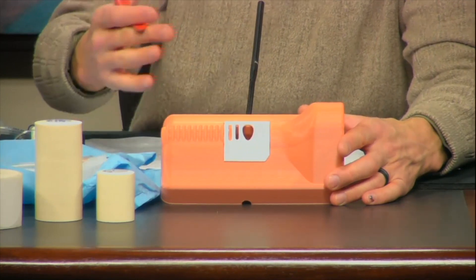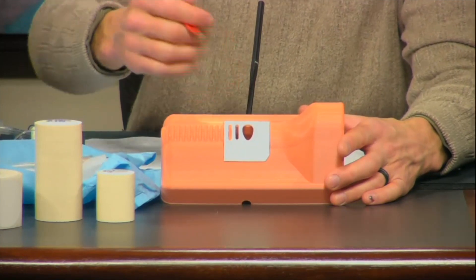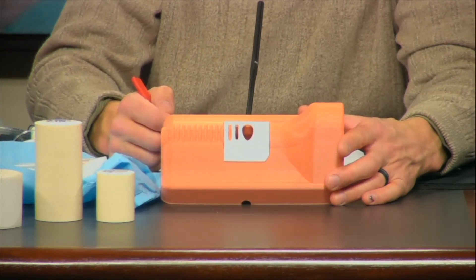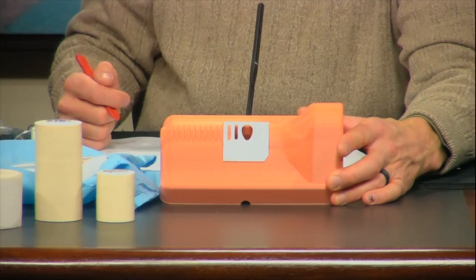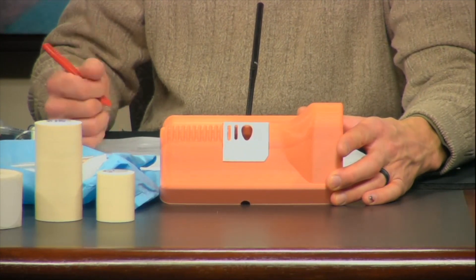The nice thing about this device is no replacement tracheas are necessary. The cartilage overlay unit is meant to be reusable under normal use and care. It has extra slits built right into it to allow for some flexibility when passing the airway. The cut membrane tape, skin tape, and adhesive blocker will be the only things that would need to be replaced once rolls are empty.